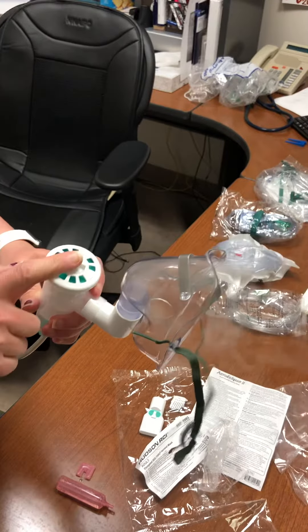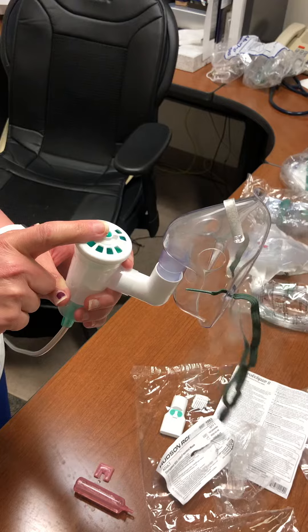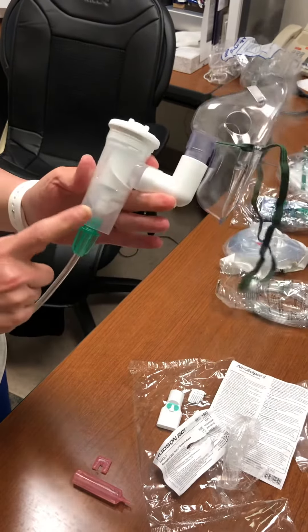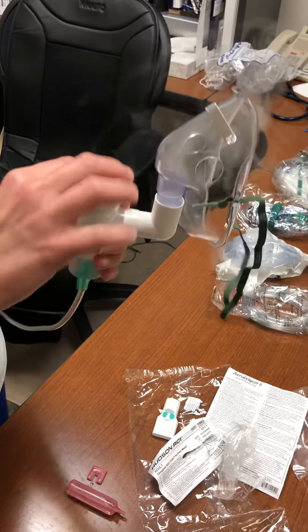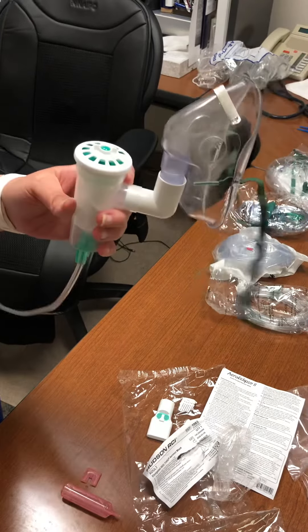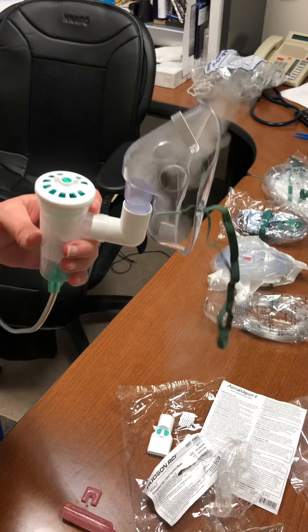If they're doing a mouthpiece it's going to be a three-minute treatment. If it's a mask, you're going to do five minutes. There will be medication left in the bottom after each treatment — that's fine, just pour it out when it's done. So three minutes, five minutes — and that's it for nebulizer.